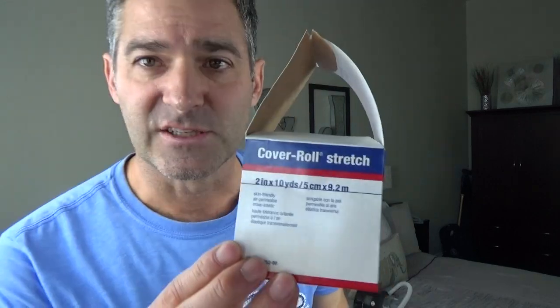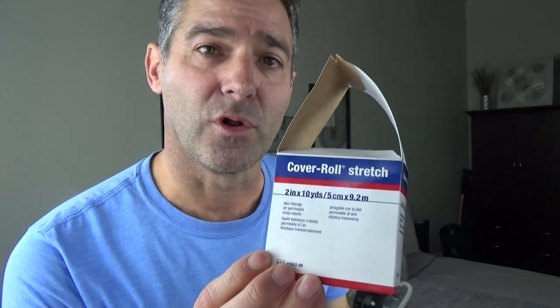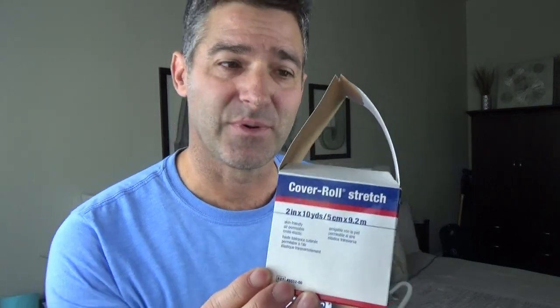Well, I found another solution. This is another bullet in the chamber of methods you can use to try to fix mouth leaking, or maybe you've never even tried. This is another method you could try — it's super cheap. I have been using this Cover Roll stretch tape. It's awesome. Please, I beg you to watch the rest of this video at this point — a lot of this is extremely important.